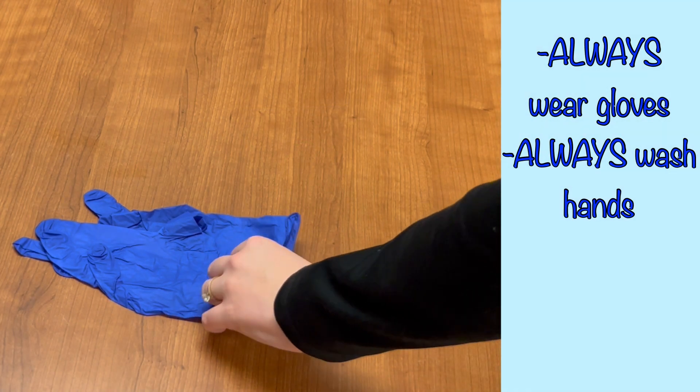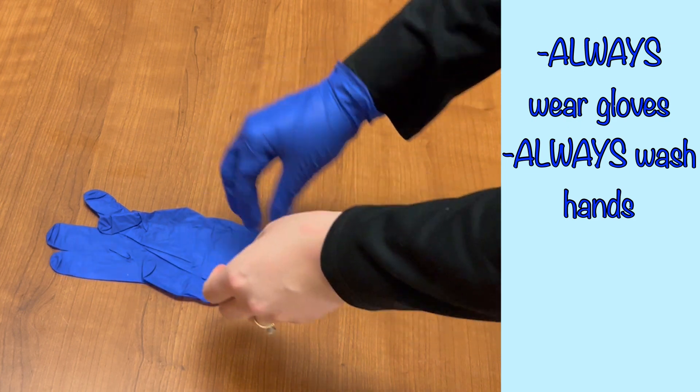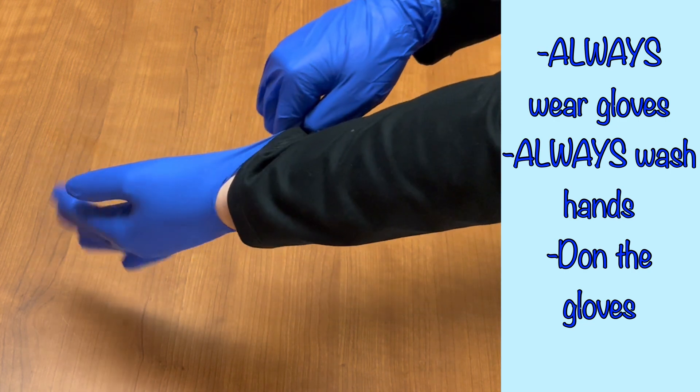When donning clean gloves, there isn't much to the technique. Clean gloves are not meant to be sterile. They protect the wearer from contaminating their hands. When the hands are clean, and the gloves are clean, simply put on the gloves.